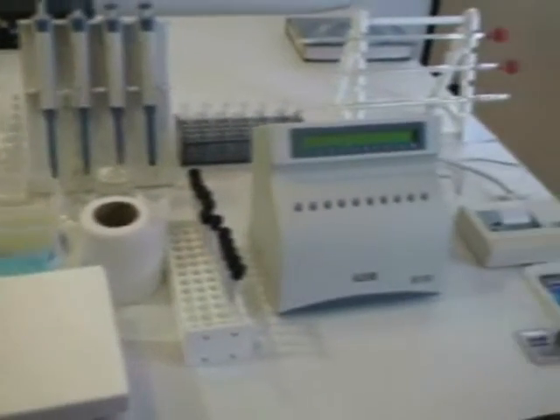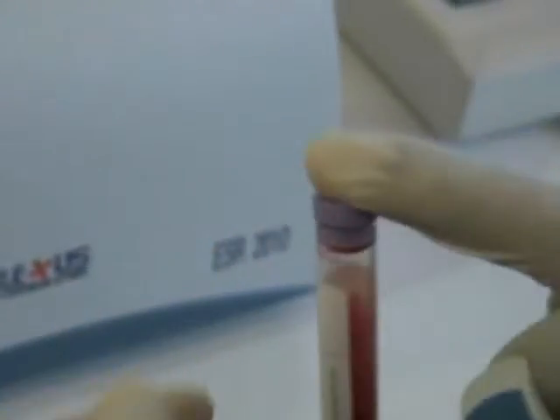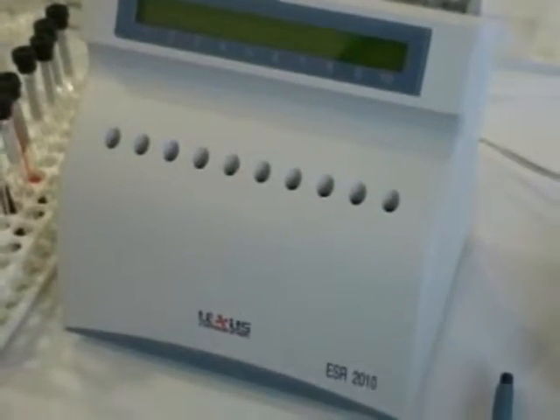ESR2010: A small genie for your big ESR task. ESR2010 is an automated erythrocyte sedimentation rate analyzer based on the standard 1 hour Westergren method.